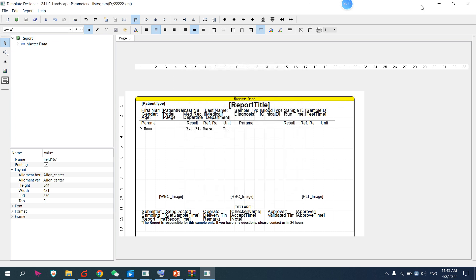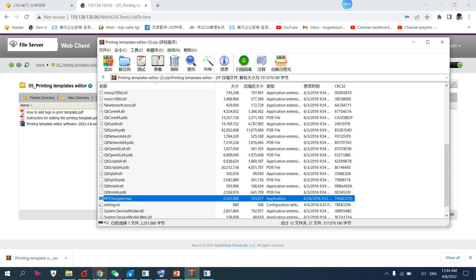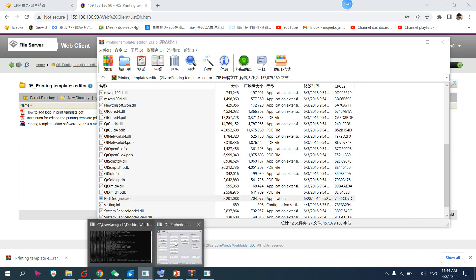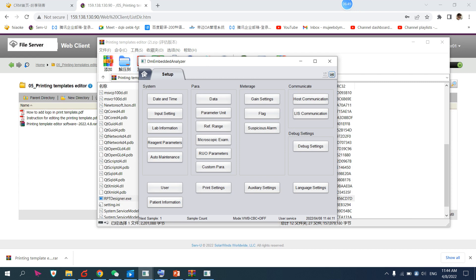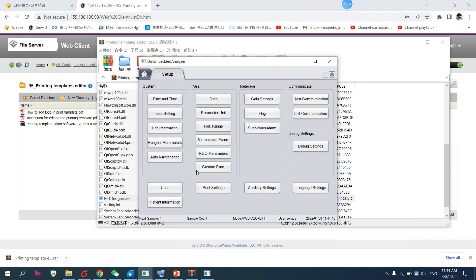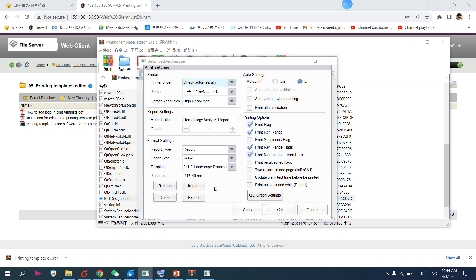Save to — for example, I have the D drive, but you will save to your USB. Then you have to insert your USB and connect it with the analyzer. This is my demo software. Connect your USB with the analyzer, then go to Setting and Print Setting, and Import.